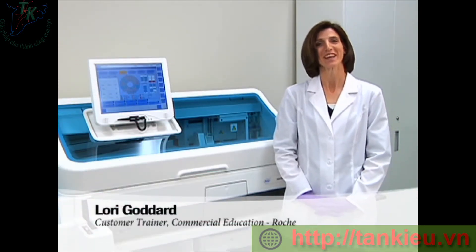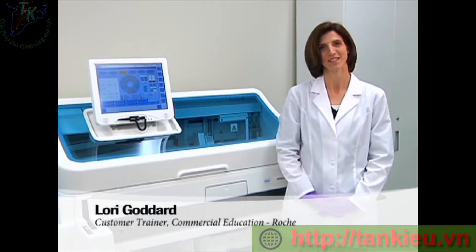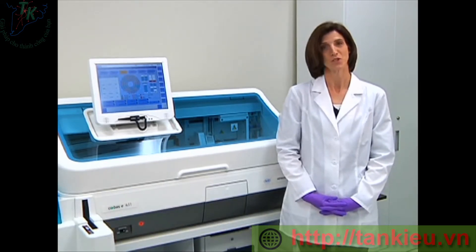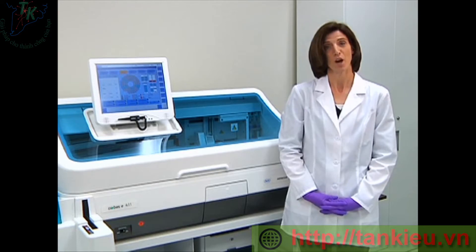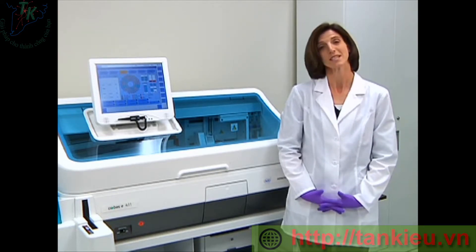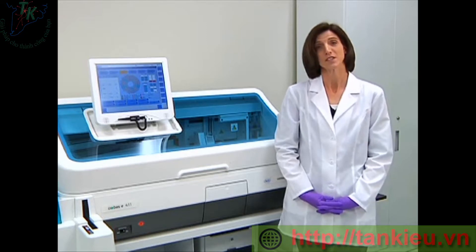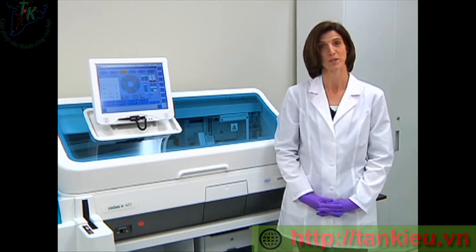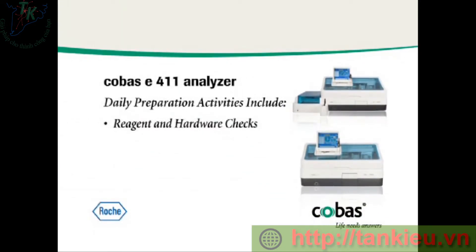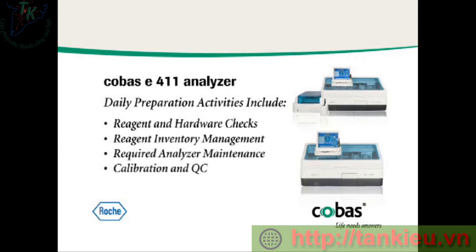Hi, my name is Lori Goddard and I am a customer trainer for Roche Diagnostics. As part of the commercial education team, my job is to train operators on the operation and maintenance of the COBAS E-411 analyzer. Today, I will be showing you the daily preparation tasks required for the instrument. Those tasks include system reagent and hardware checks, reagent management, analyzer maintenance, and performing calibration and QC.